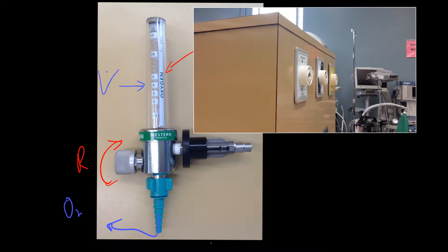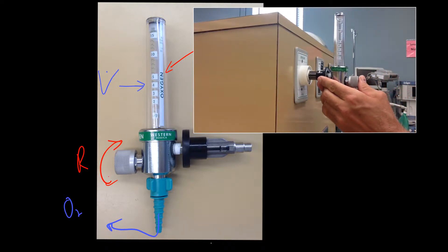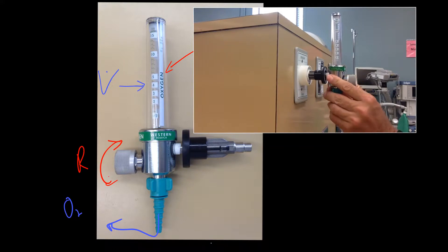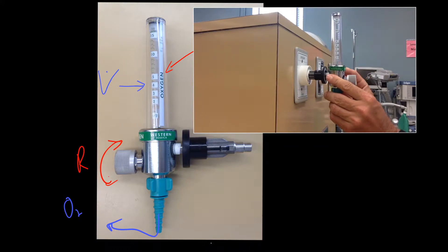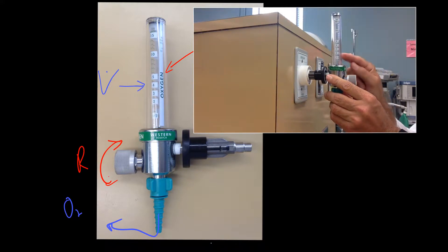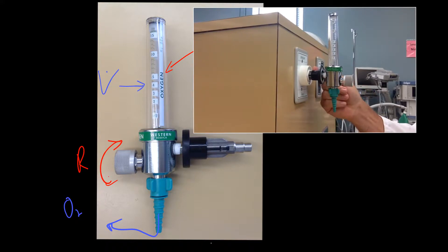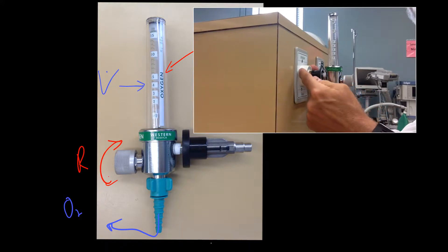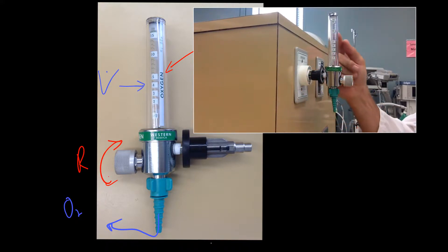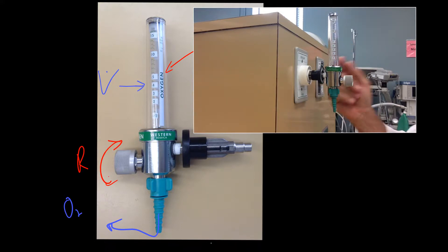Another way to tell if you've got a compensated flow meter is when you plug it into a wall outlet, you'll notice the little ball inside jumps up and then comes back down. That's because the pressure from the wall outlet is equalizing within the Thorpe tube inside.